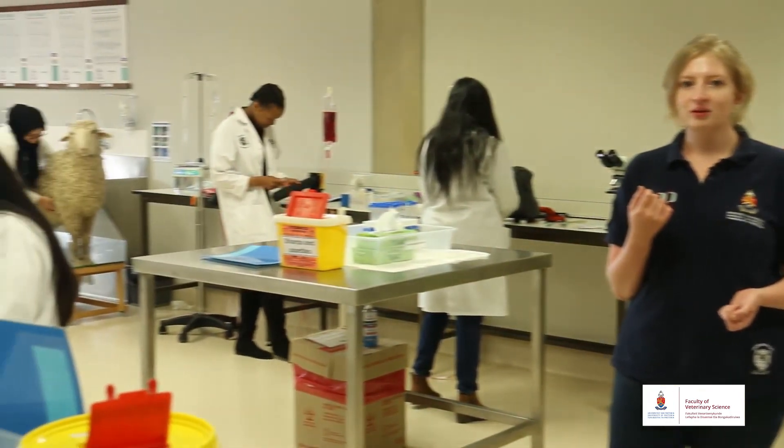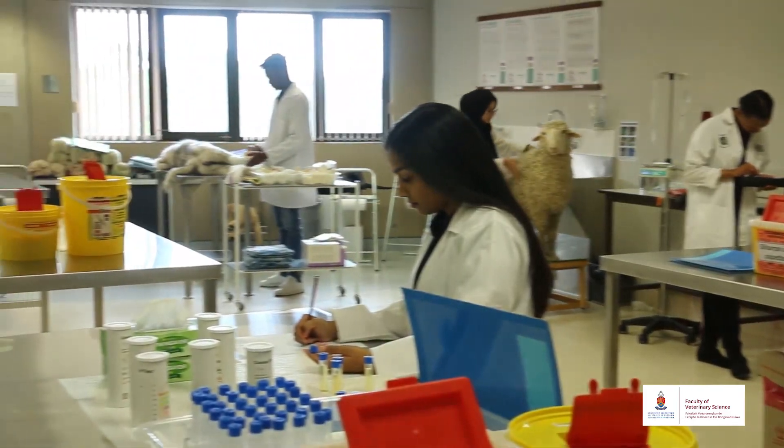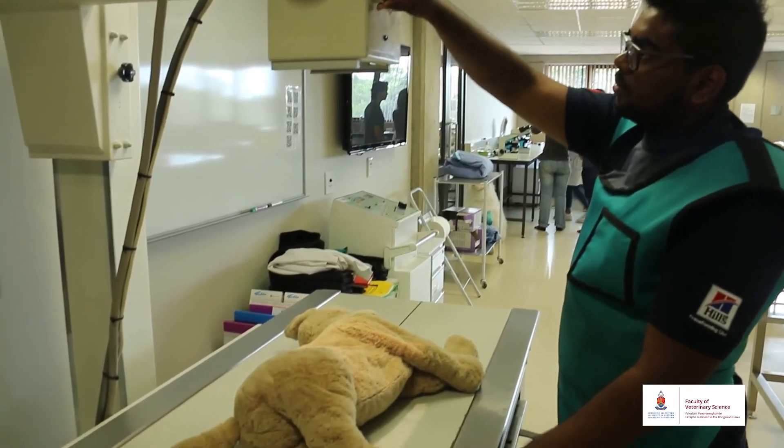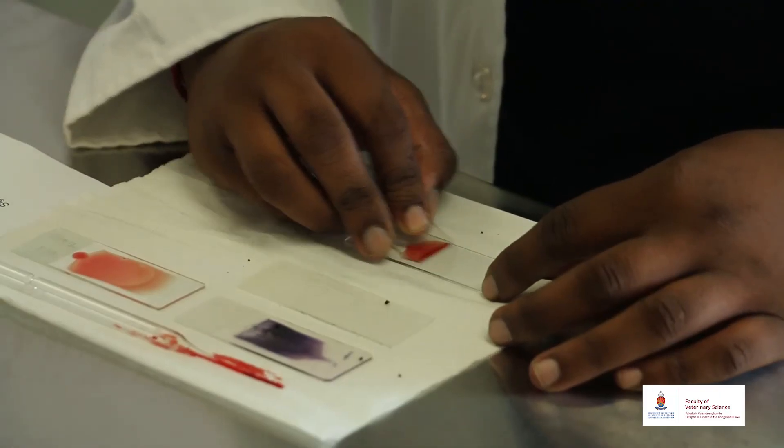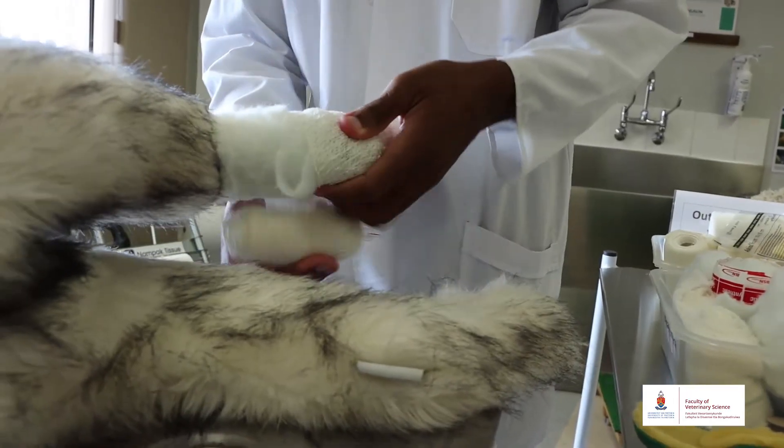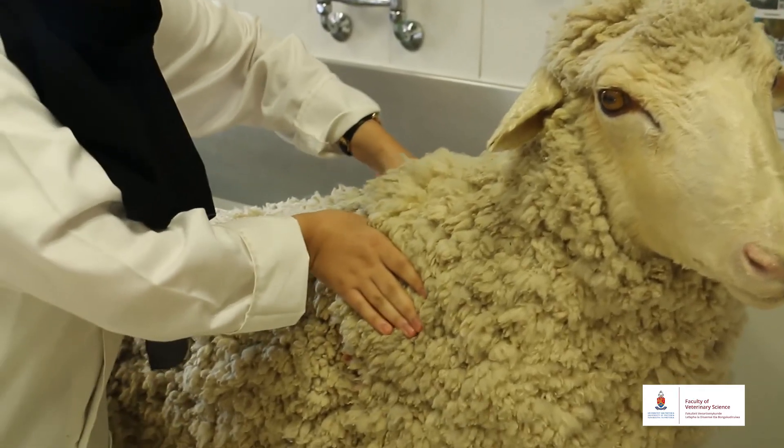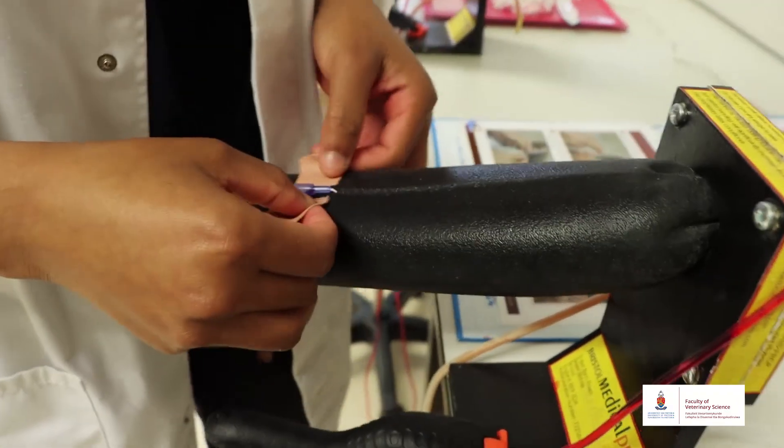This is our clinical pathology room in the skills lab. This facility includes x-rays, hematology, bandaging, body condition scoring, placing IV catheters and urinalysis.